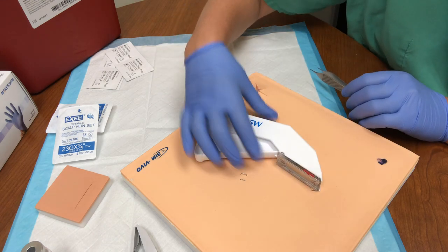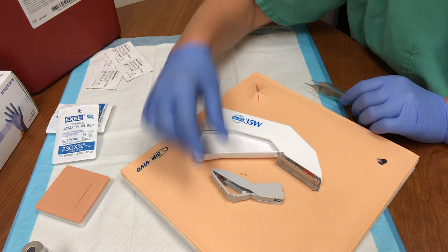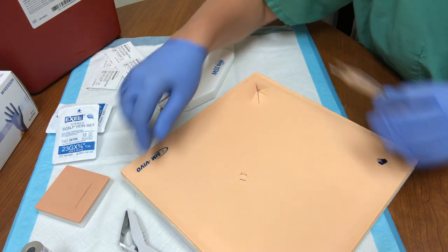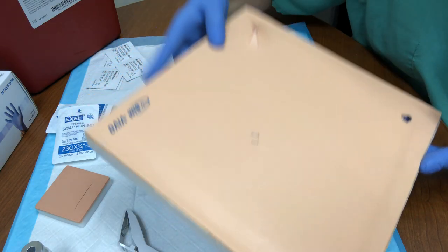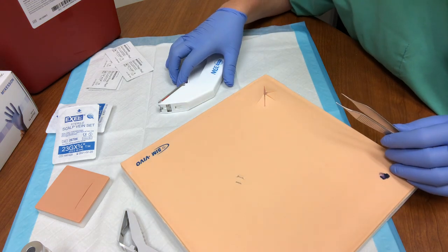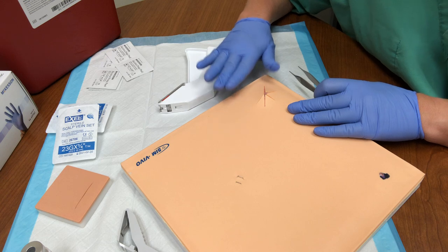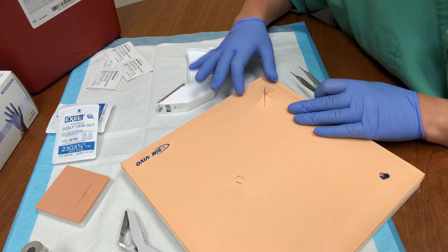In your pack you have a regular 35-wide stapler. The other thing you will potentially see out in the emergency department is a smaller caliber stapler. The difference between those two staples is demonstrated here — hopefully you can see the difference between those two widths. Often times in the emergency department, because you are trying to pull together structures that have been widened, underneath this type of laceration we are going to have a significant amount of edema that has already begun to occur to the tissue.